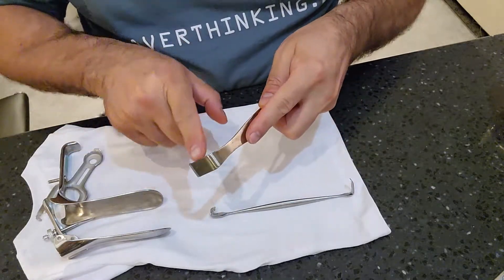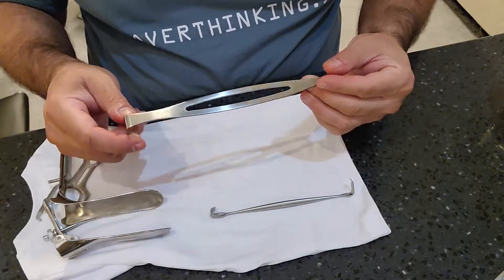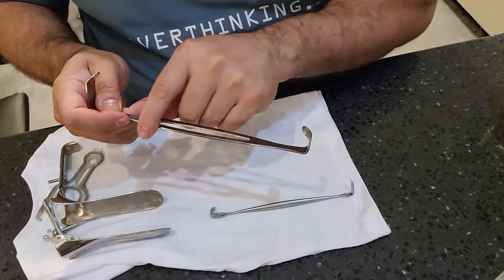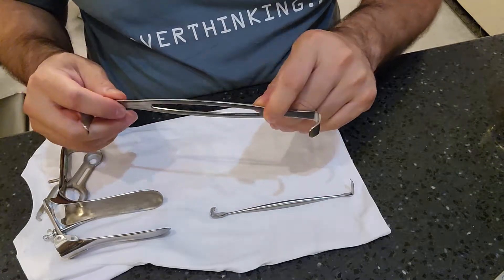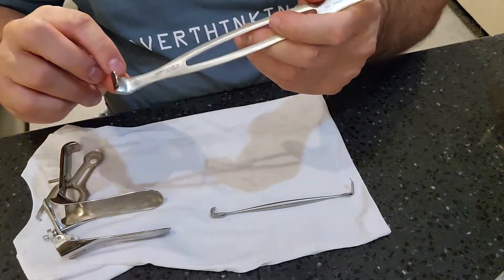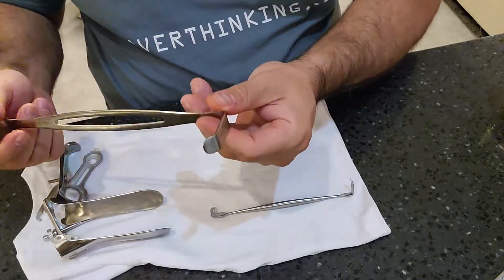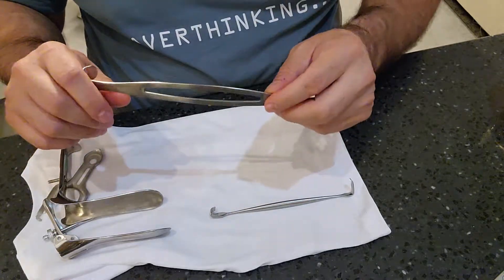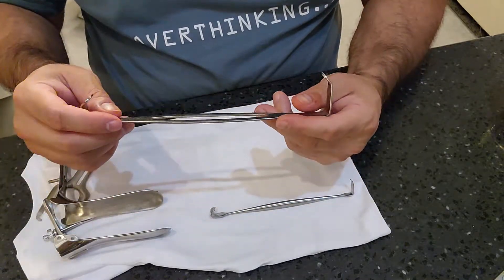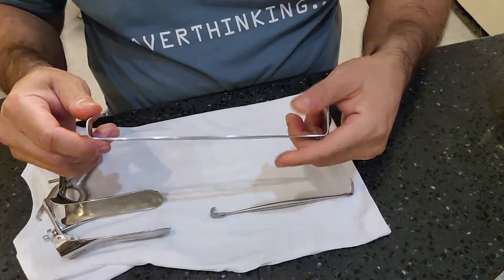Sharp edges and pitting often occur because when retracting areas, power drills or saws can accidentally hit and cut into the retractor — you'll see this a lot with suctions in neural cases. Inspect for sharp edges, burrs, discolorization, rust, bio burden, and check the bends for cracks or damage. These instruments can be in circulation for decades because they're very durable, as long as they're not damaged or cracked.